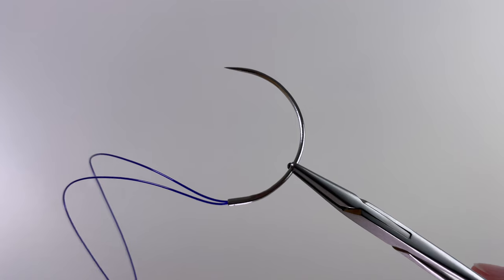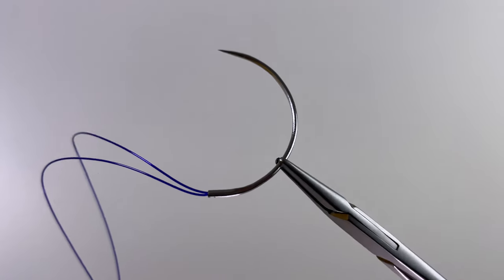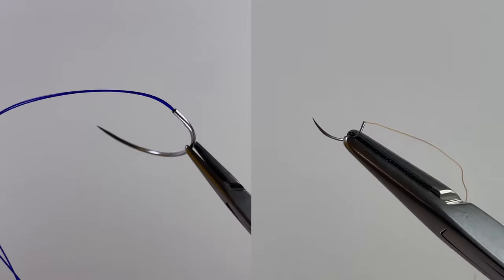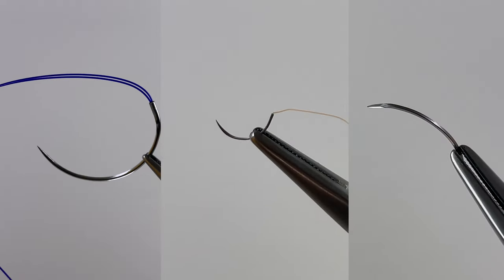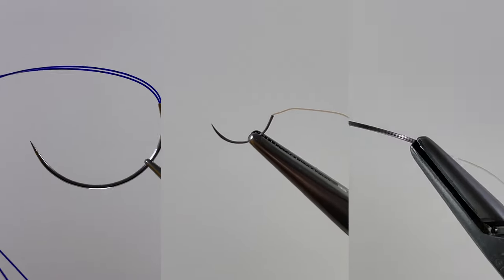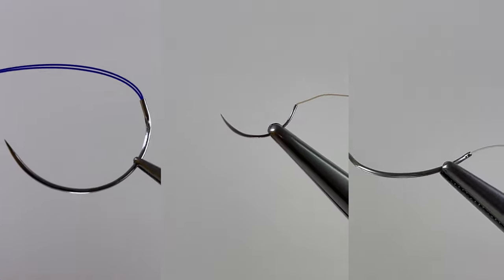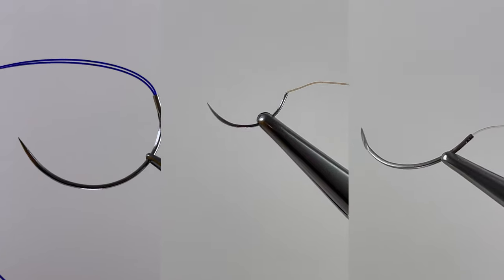The outcome of any wound does depend on the type of suture material and the architecture of the needle. Using the wrong needle or suture type can result in excess tissue damage at the wound interface and result in a less than ideal cosmetic outcome for your wound.